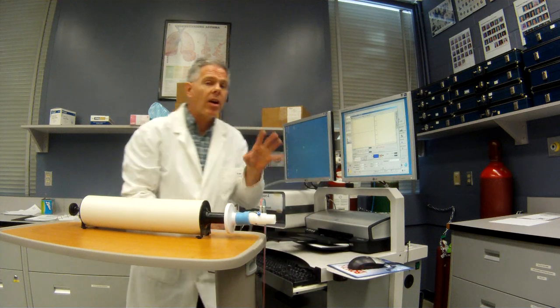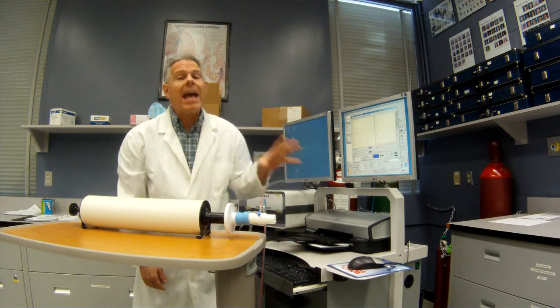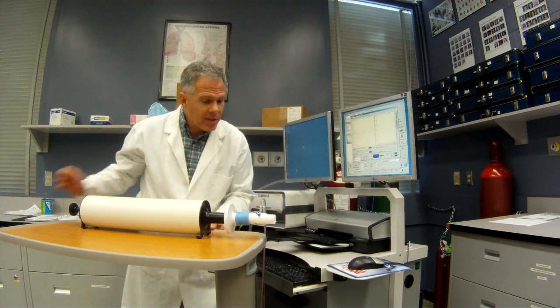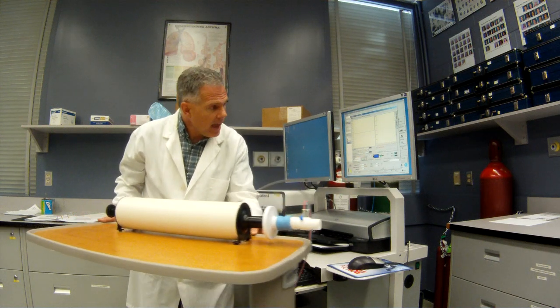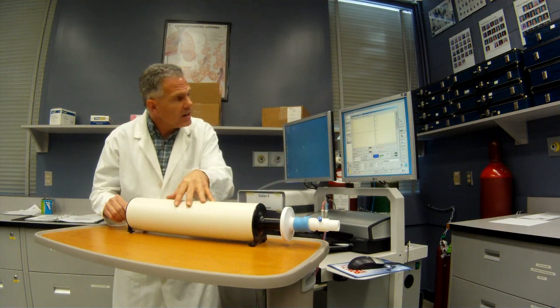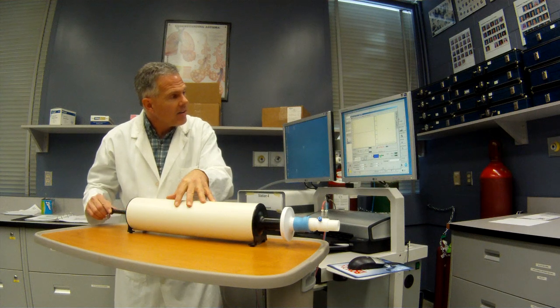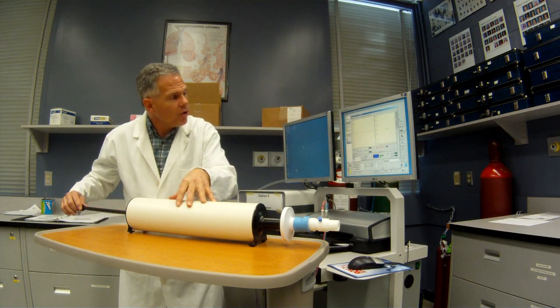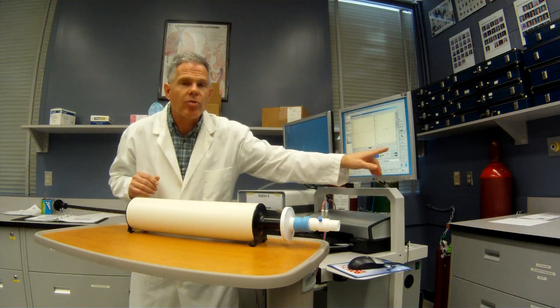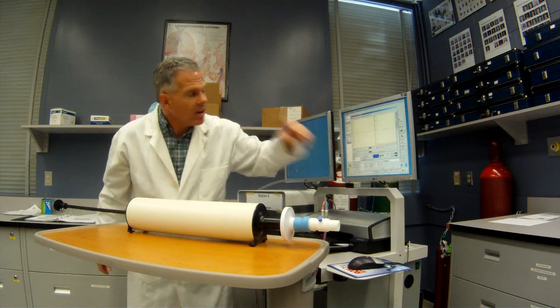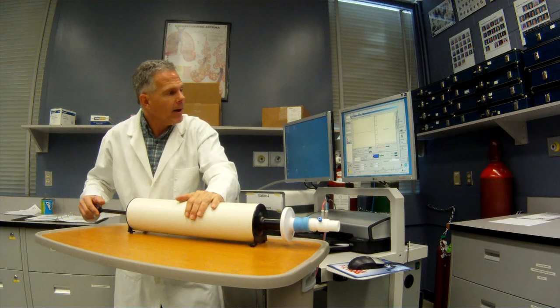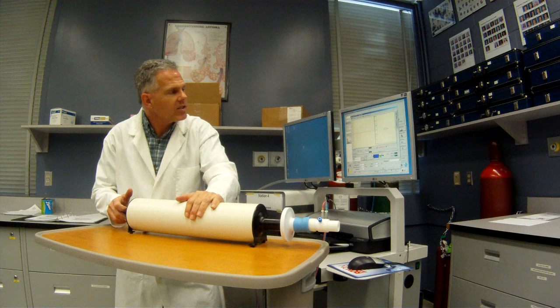So, initially, like a lot of pneumotacs, it doesn't want any air going through the pneumotac. That's why it gives you that little x. Now it says get ready and withdraw. So we're doing our low flow. So, as I pull back gently, the goal is just to have those blue bars just in about the middle of the screen. So that's inspiration. And that gives us a flow rate of about one liter per second. Both on inspiration and exhalation.